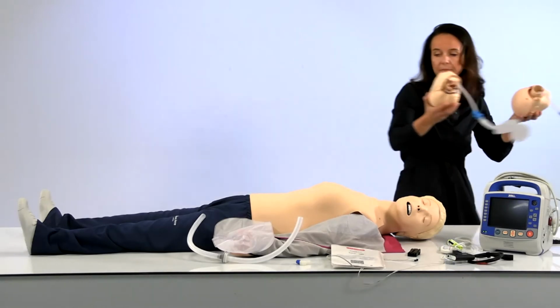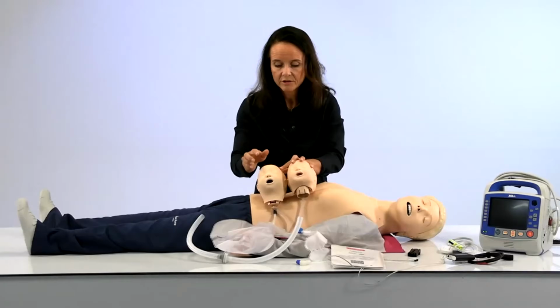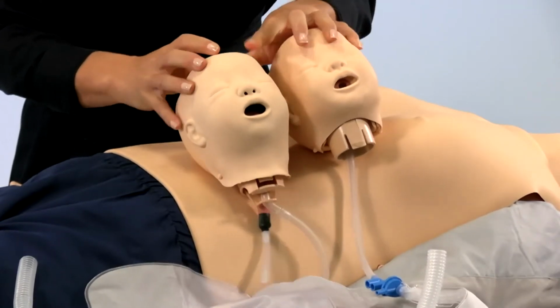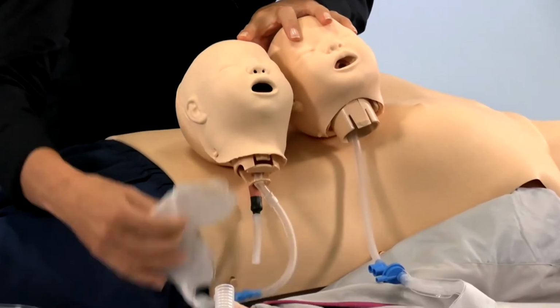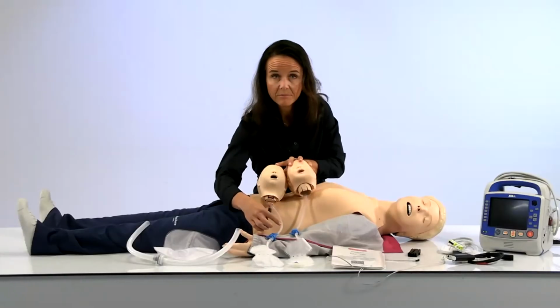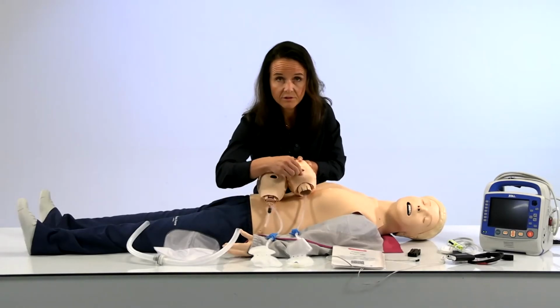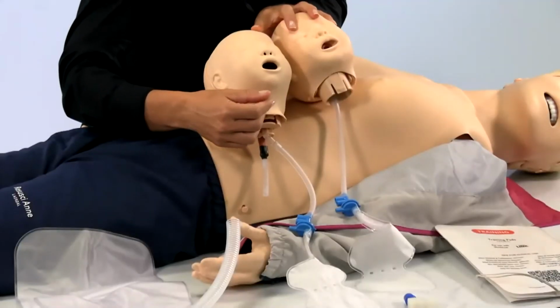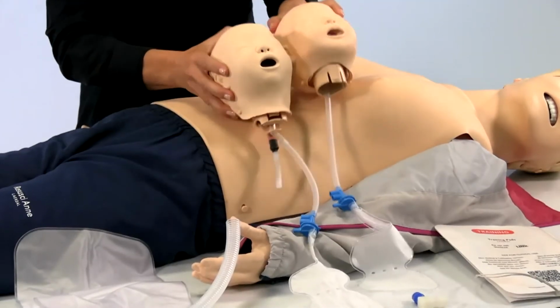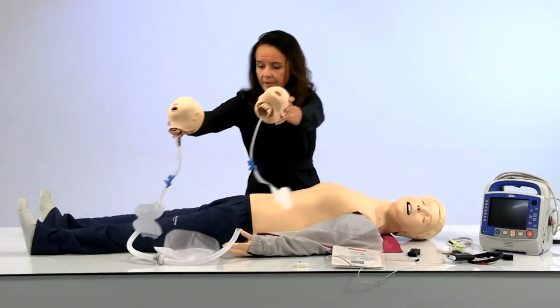Do you have the baby heads here? This head is the one I showed earlier, the airway head. This is the standard head for a Resusci Baby. I don't know if you can see this, but also here we have the same principle. The lungs are the same. It's just how you connect it into the trachea versus the mouthpiece of the standard head, which is different. It also has the exhaust like this. For the junior, I will put it here.